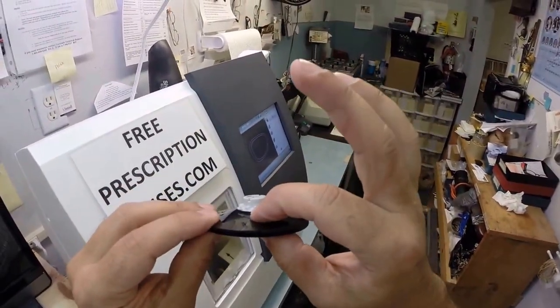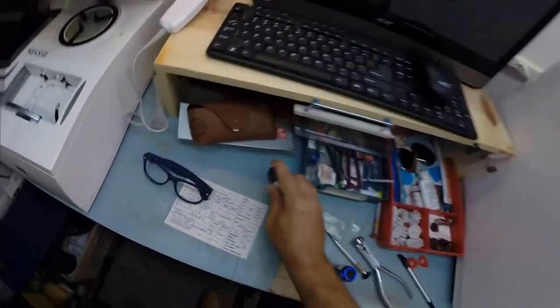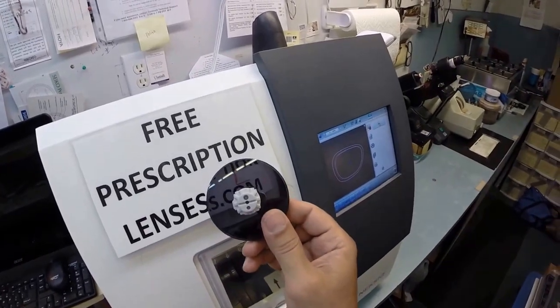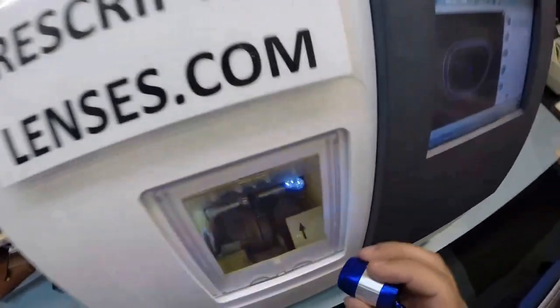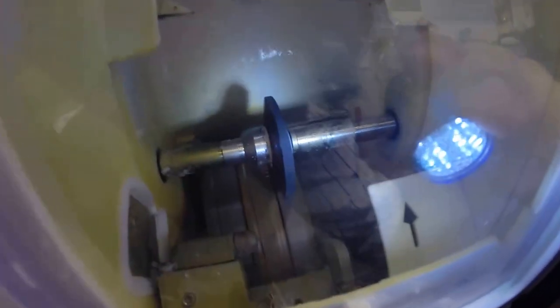Now your lenses are made out of polycarbonate. Polycarb is 40% thinner and lighter than regular plastic. They're virtually unbreakable. Your lens is bulletproof up to 22 caliber and has both UVA and UVB protection built into the lens. We know what the sun's harmful ultraviolet rays can do to your skin. Your eyes are eight times more sensitive than your skin. So you have permanent sunscreen for your eyes. Unlike the lotions, creams, and sprays that need to be reapplied every couple hours with direct exposure, this is permanent UV protection.